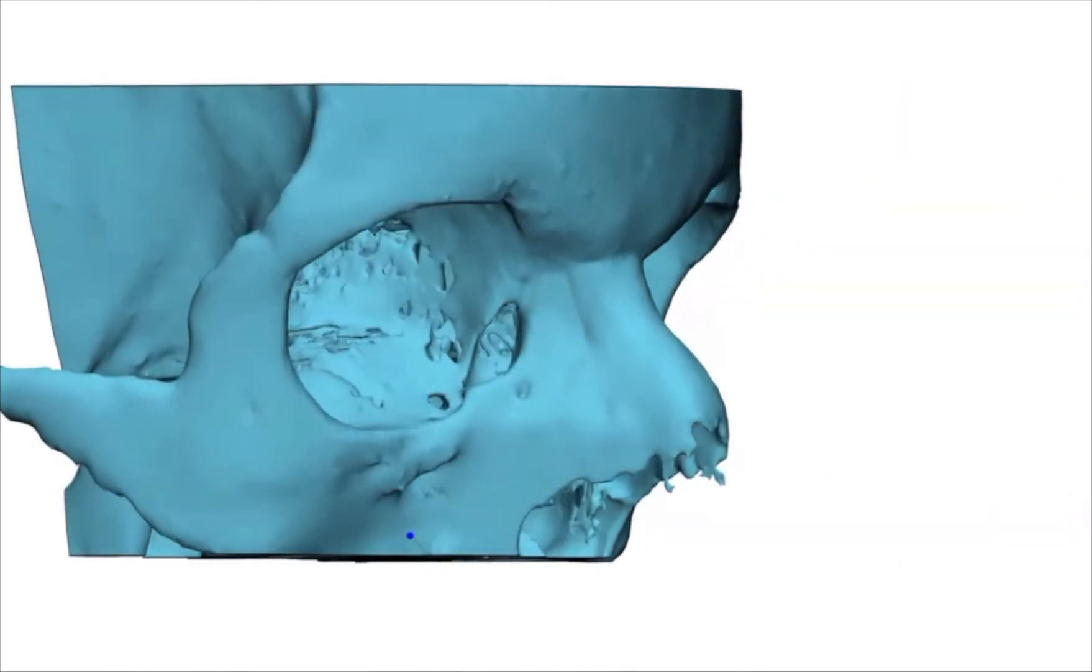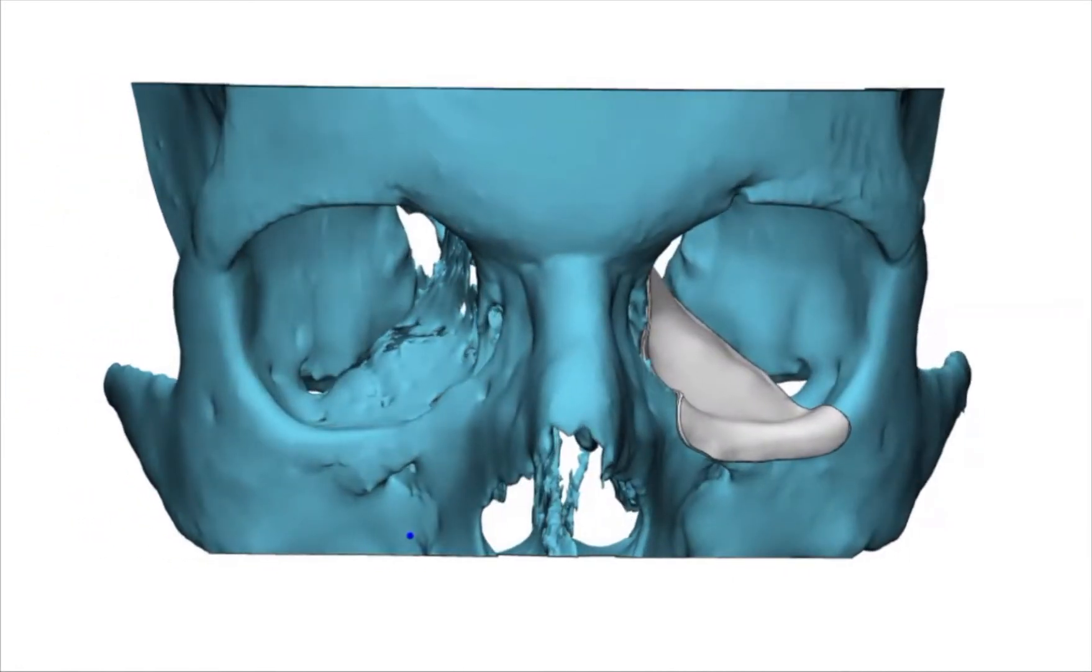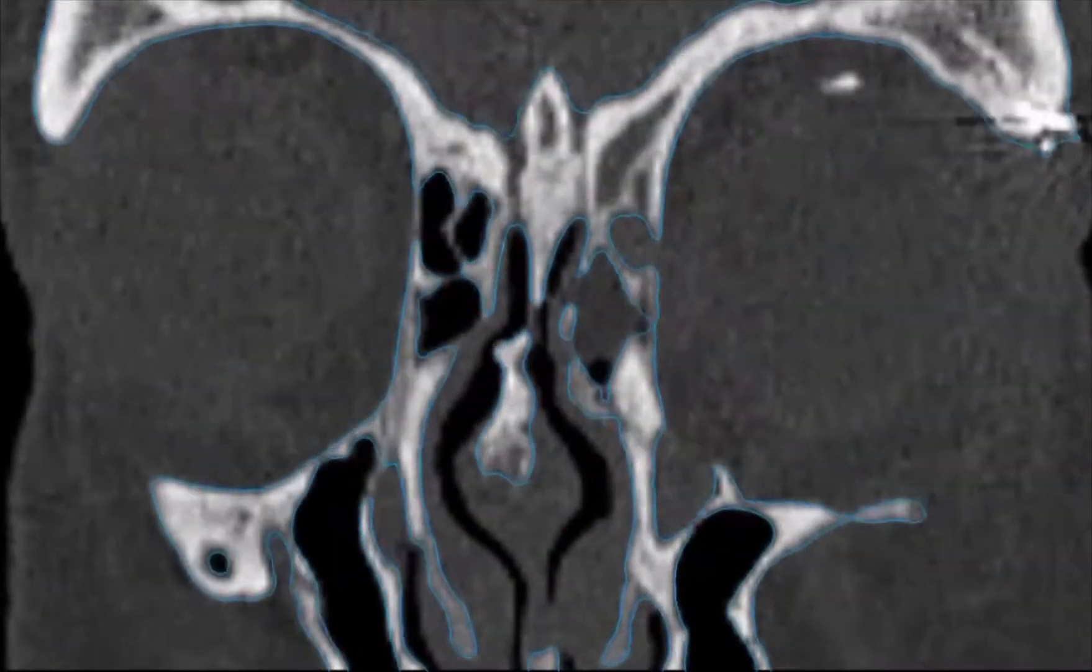Here is a 3D view of the patient. The patient-specific implant is symmetric with the right side. Case 2.